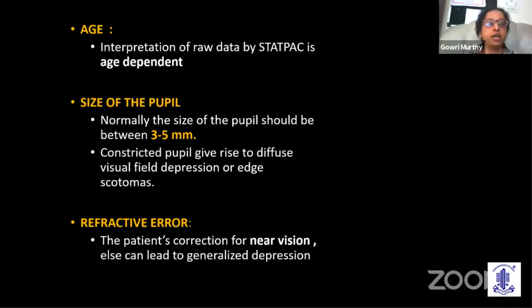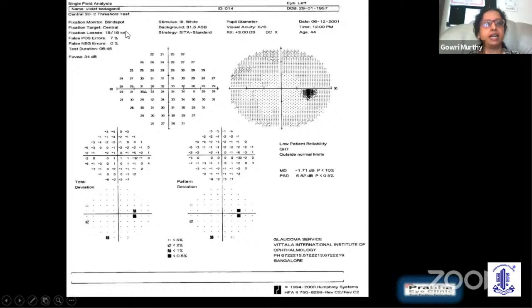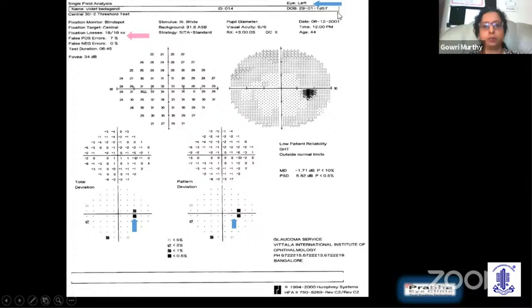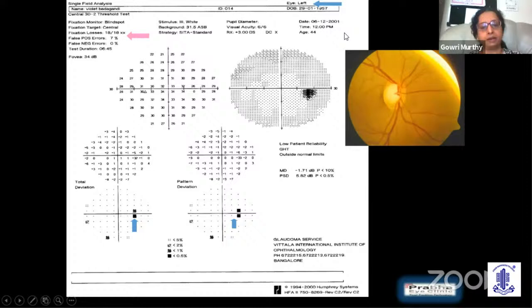Let's quickly look at this visual field and see what's wrong with it. The fixation losses are 18 out of 18. The blind spot is on the right side — this patient has had the eye entered incorrectly as the left eye. So the perimetrist made an error; the patient did the test wonderfully. Since it was entered as the left eye, the machine was always searching for the blind spot in the wrong location, and therefore fixation losses came up as 18 by 18.